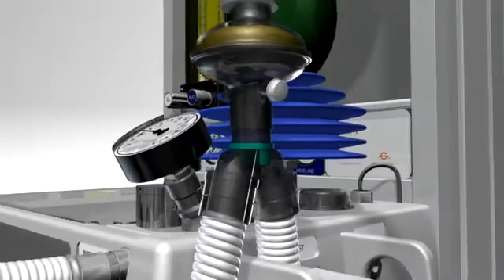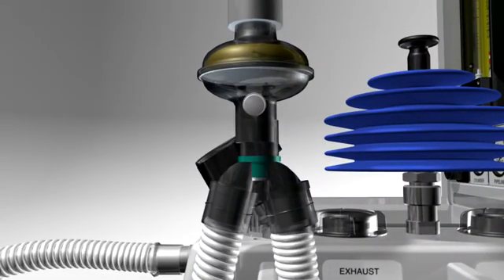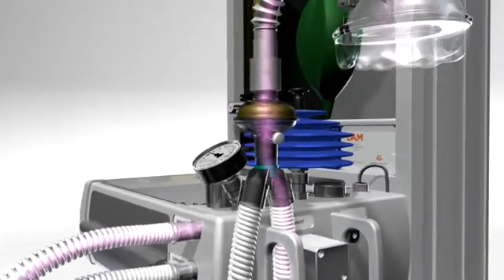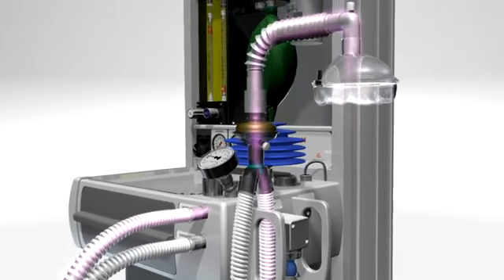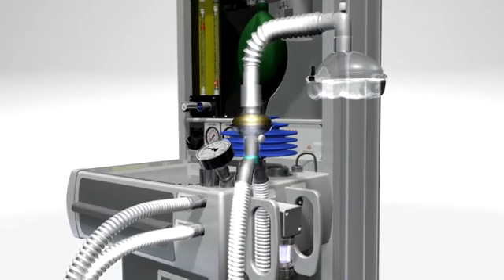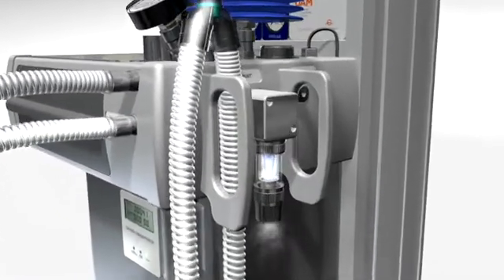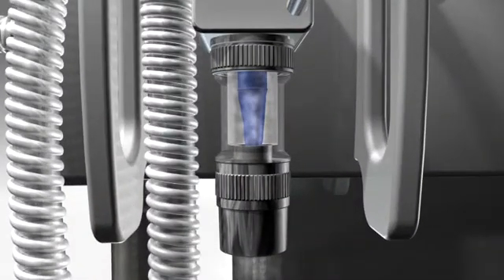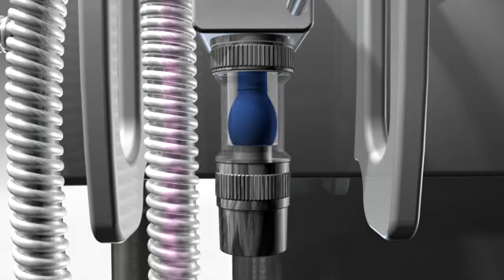The UAM uses a conventional Y-piece patient connection. The anesthetic gas flows to the patient through the Y-piece, connected to a face mask, endotracheal tube, or LMA. The expiratory limb of the Y-piece channels gas to an inflating valve on the UAM that functions like an AMBU valve. It uses a balloon made from long-lasting silicone, which closes during inspiration to direct gas into the lungs.